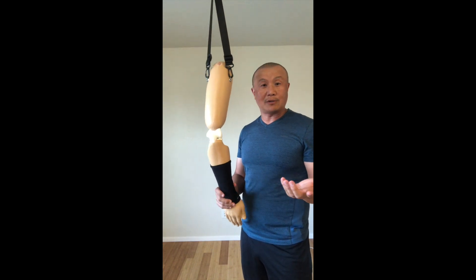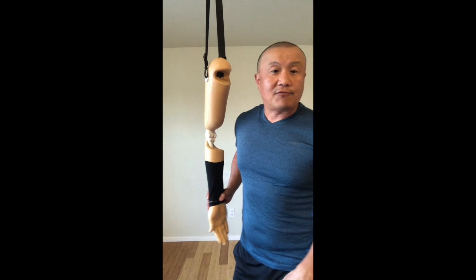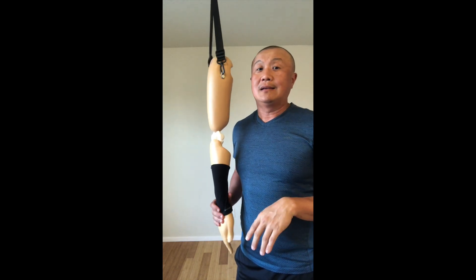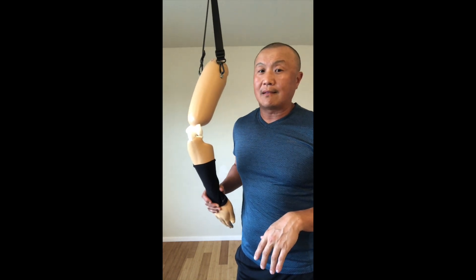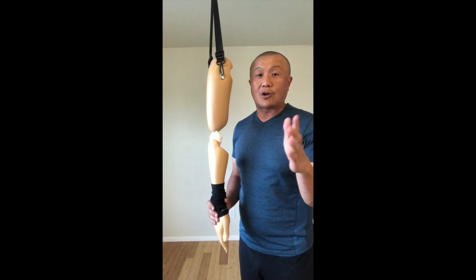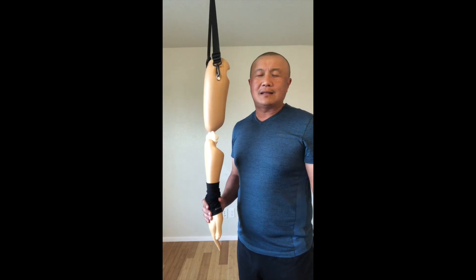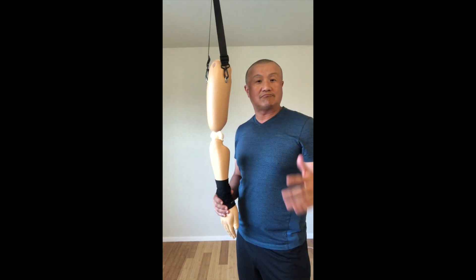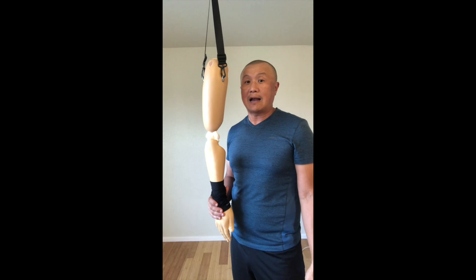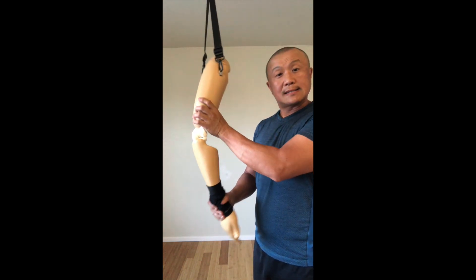Since I had the body strength I was able to do it, but if you don't — say you're an 80-pound athletic trainer and you encounter a 250-pound football player who dislocates — you do the steps to check everything, then you have to reduce it. It depends on the situation, the doctor you work with, the institution, and the state. But if you have to do it, you want to know how.